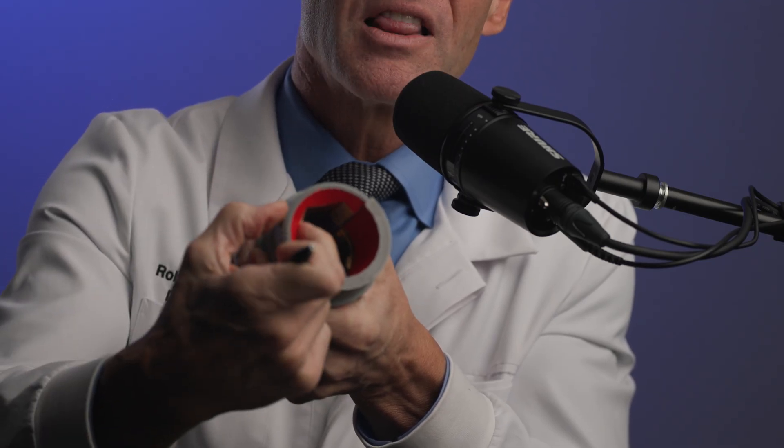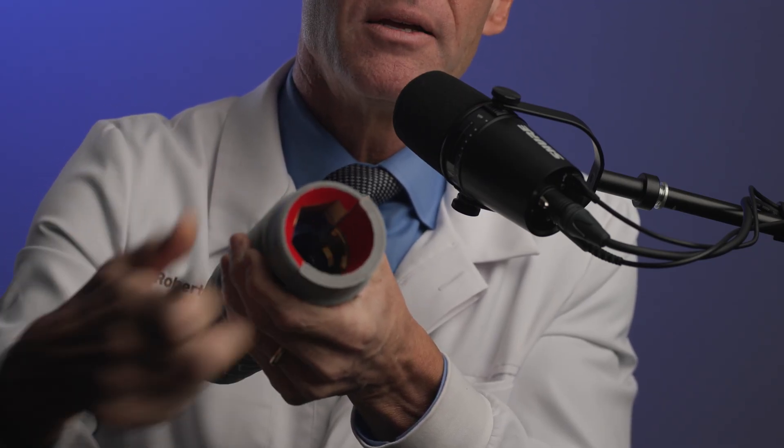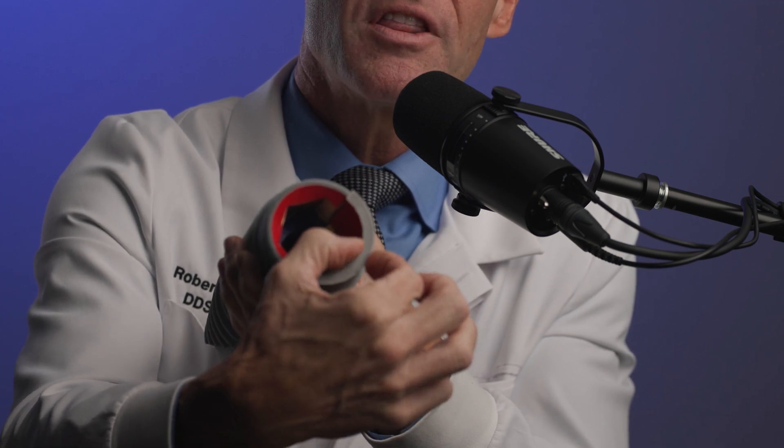For those of you that don't understand the concept of the difference in strength, I'm going to bring together my two products. When I hold them up, note that on the shallow conical seal side there is a lot more material. On the deep conical seal side there is very little material — very thin walls. And thus, the problem is this: if you ever have an abutment screw become loose, the minute it becomes loose with a deep conical seal, there is a gap that runs along the entire interface.